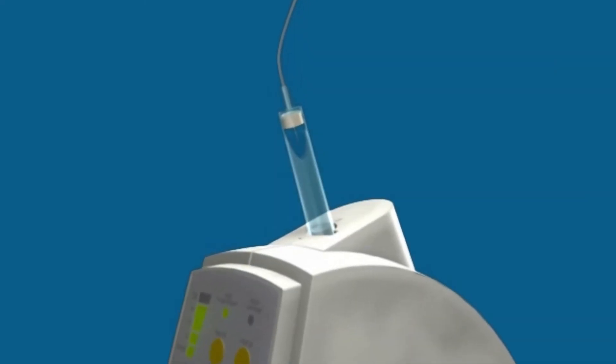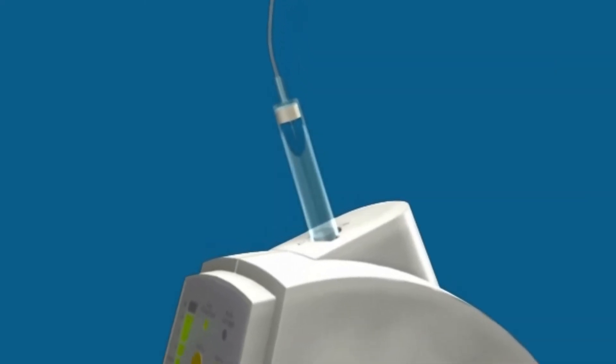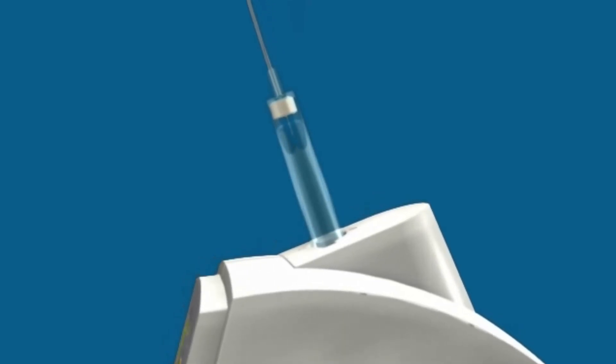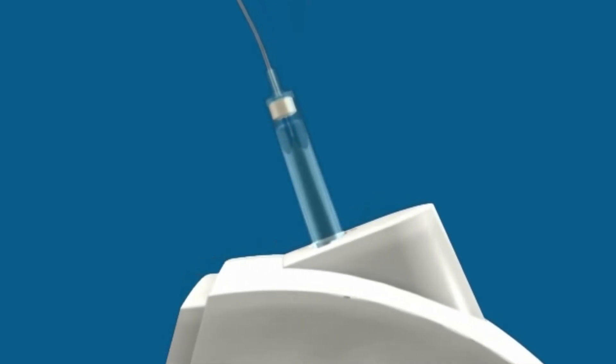This provides technological advantage to this delivery system for dental injections, resulting in a safer, accurate, and more comfortable dental injection for the patient.